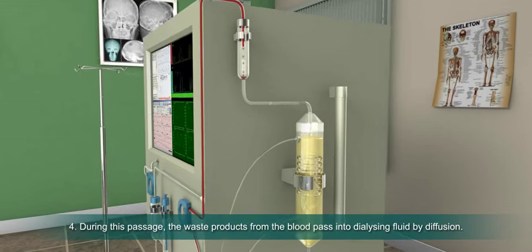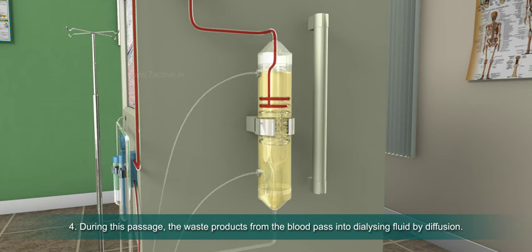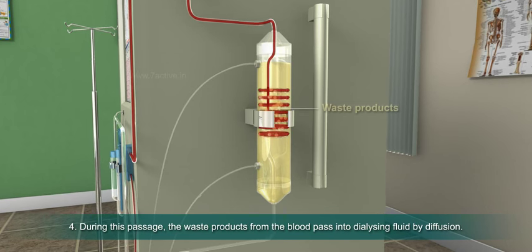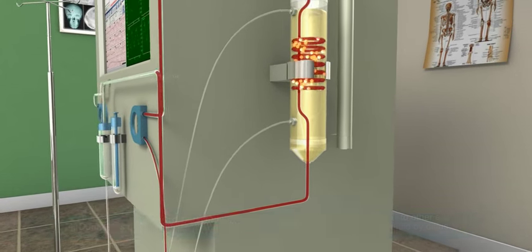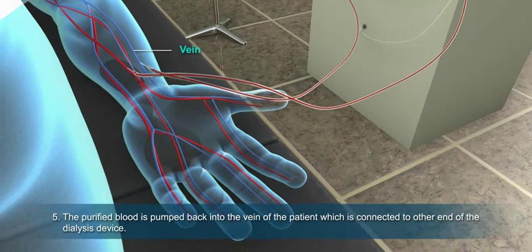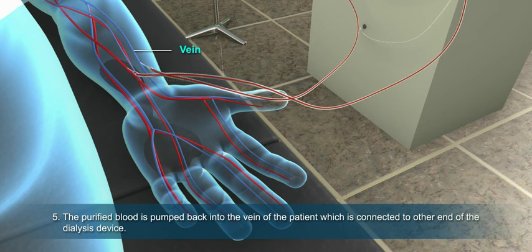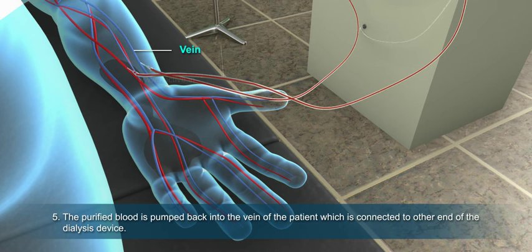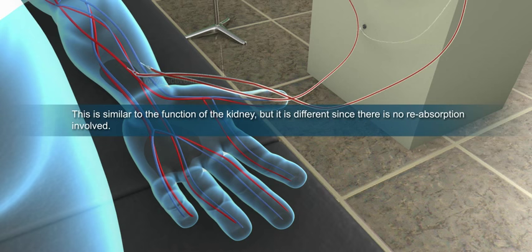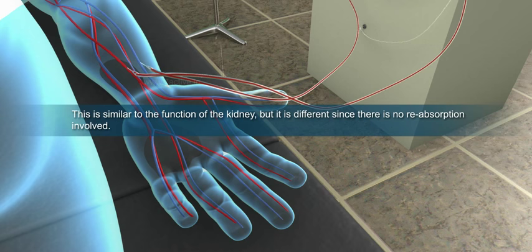During this passage, the waste products from the blood pass into the dialyzing fluid by diffusion. The purified blood is then pumped back into the vein of the patient, which is connected to the other end of the dialysis device.